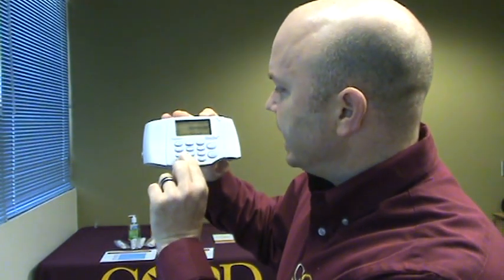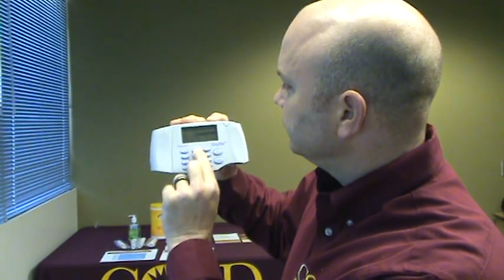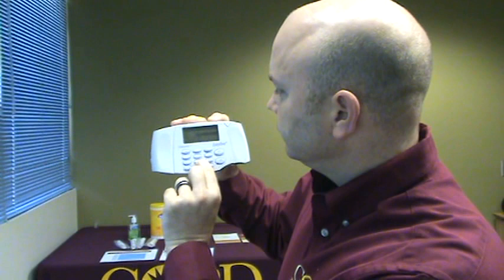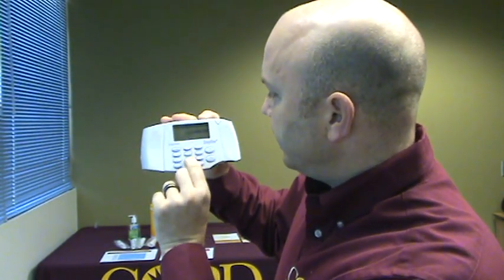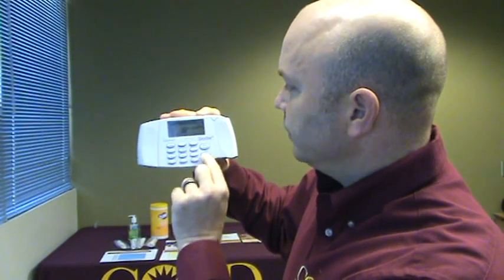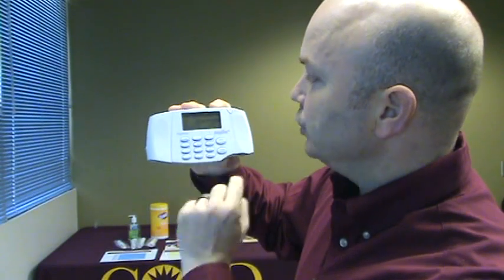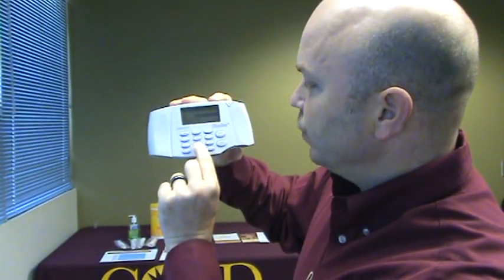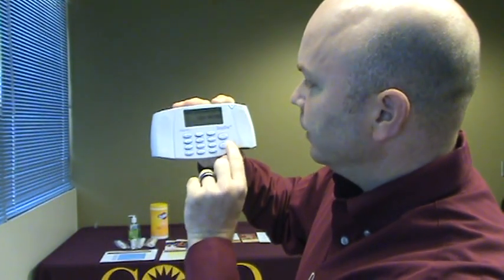So we're going to enter a name — my name is Scott. I accidentally put 'scout', so I'm going to press enter then go back. You press and hold escape to go up one field, use the left arrow to backspace and retype the correct letter, then press enter to confirm.